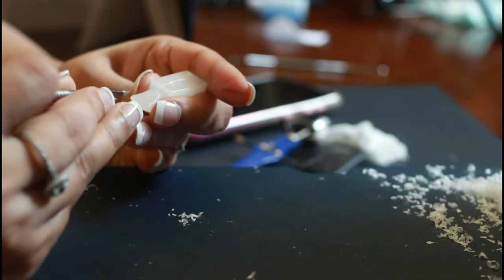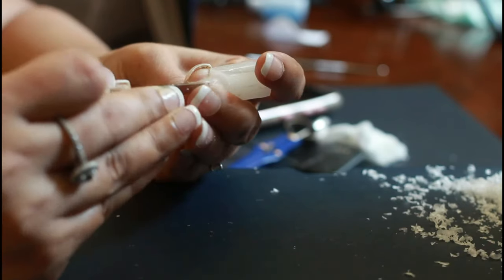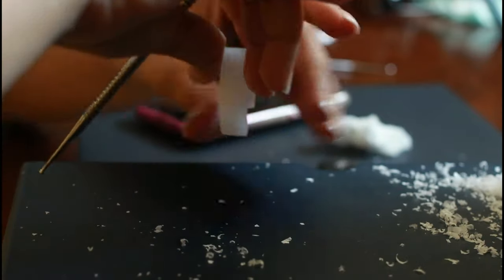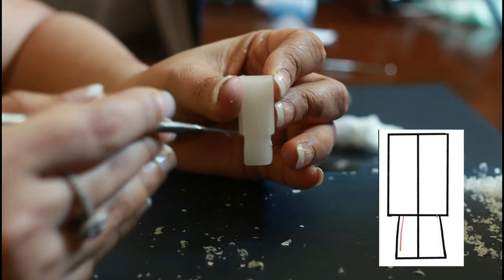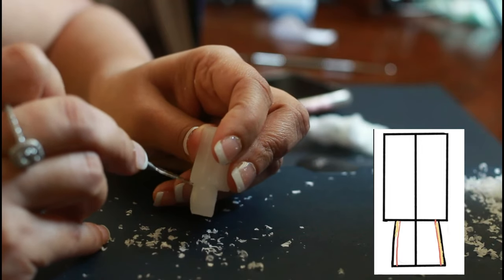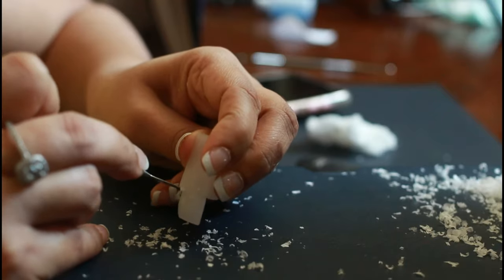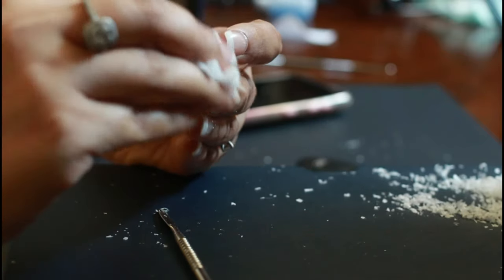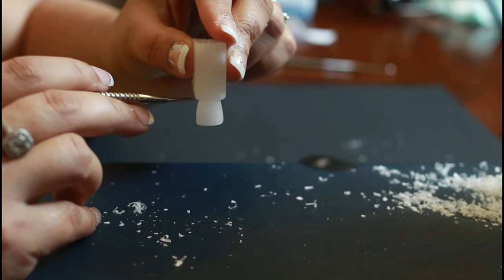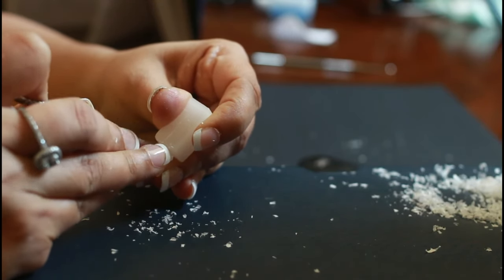Going back to the palatal surface again to remove the little excess that was left, especially at the incisal edge. Now it's time to pay attention to the dimensions of the labial aspect. Mark the dimensions again at the cervical third and remove the excess starting from the neck of the tooth. Make sure none of the lingual surface is visible when viewing from the labial aspect.